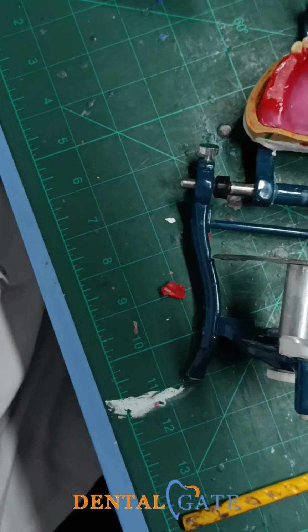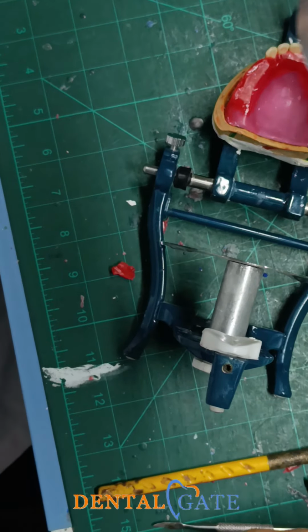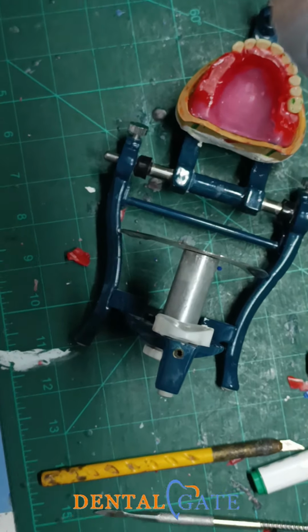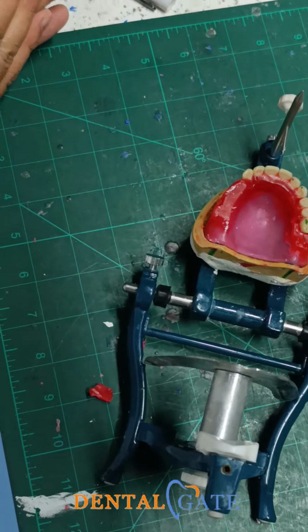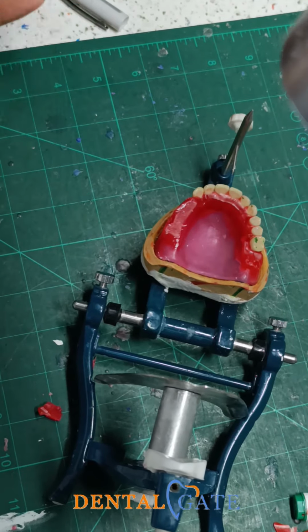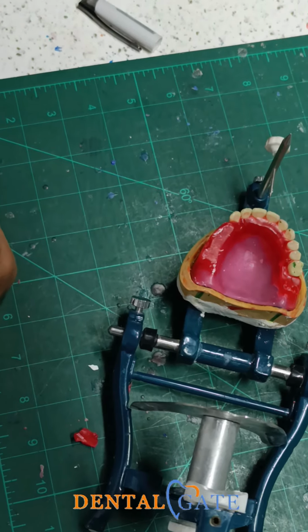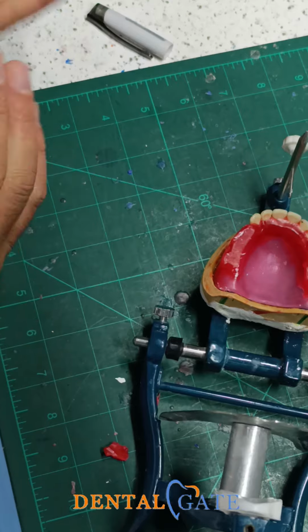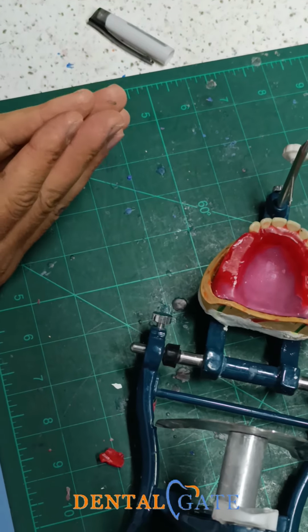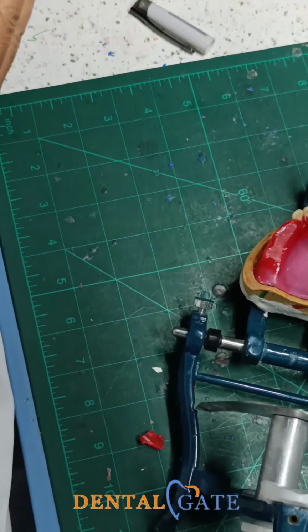The contact within the teeth, within this tilting, will be normally performed. Contact of what? Yes, this is the criteria of the natural teeth, of the premolars. Yes, within the occlusal third. It should be located in the occlusal third. When you make a tilting against the mesial side, the contact will be easily performed. This criteria is the normal one, the normal package for the natural teeth. Okay?